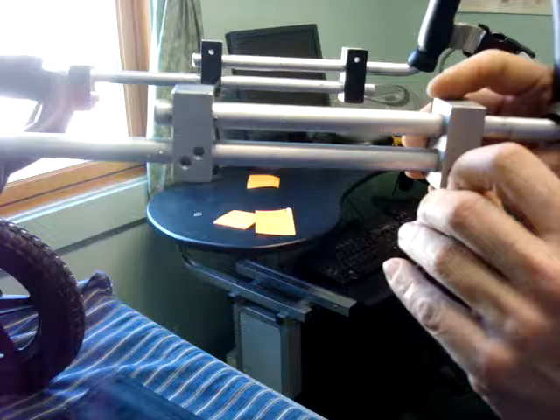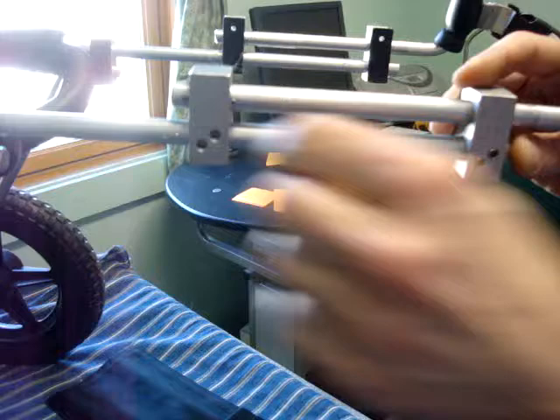First, we're going to pull the pins on the yoke to open up this side. Now we're going to use the wrench and in turning the set screws out, it's helpful to use the small end in there to get more leverage.